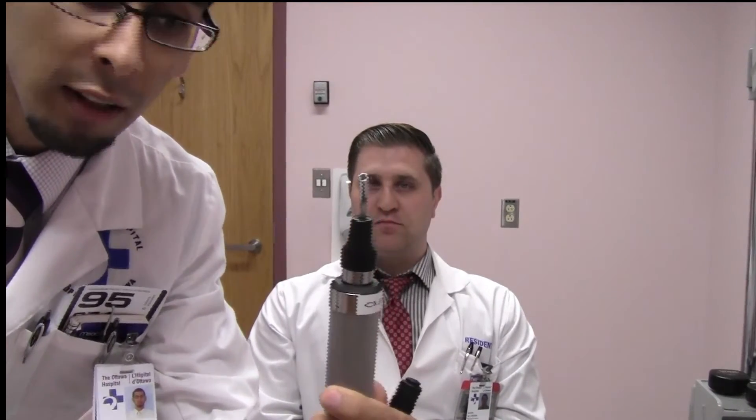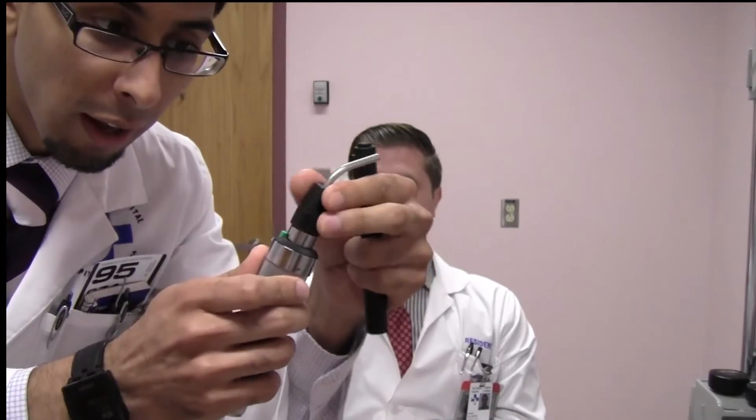First, let's talk about equipment. You'll need a muscle light — a little light that connects to a standard handle, in this case a Welch Allyn handle. Turn it on and there's a light. What you can also use is a standard pen light to assess for RAPD. This version here is the Streamlight Stylus Pro, which I particularly like carrying around because it's very, very bright.